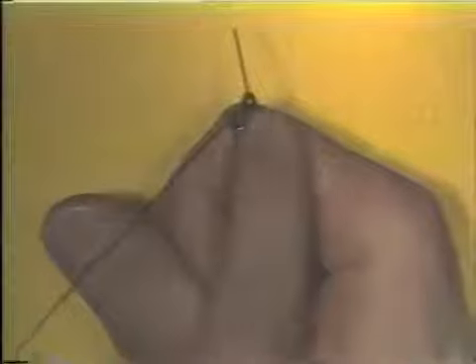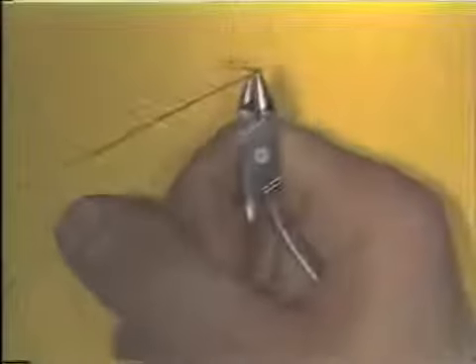And after you have a bend in the wire, it has to be oriented so that any bend in the wire is directly perpendicular to the flat beak of the plier. The 90-degree bend is then completed by pushing the thumb over the round beak of the plier. The wire is tried back on the pattern then to determine if you have made the bend correctly.